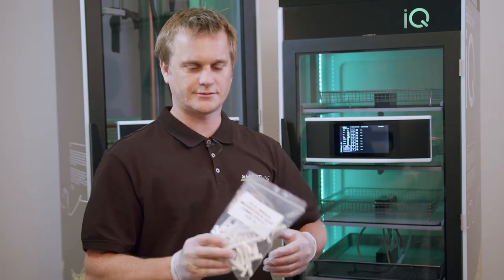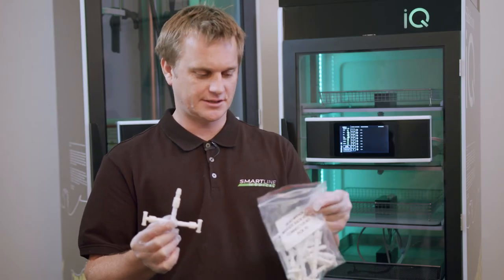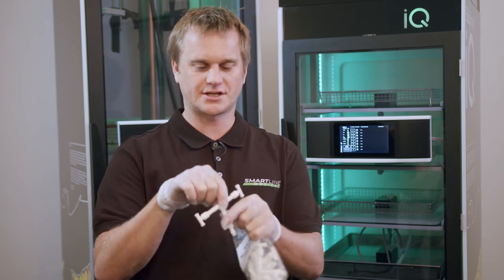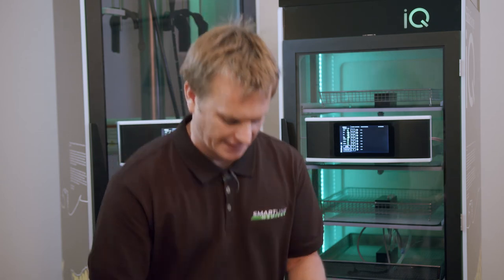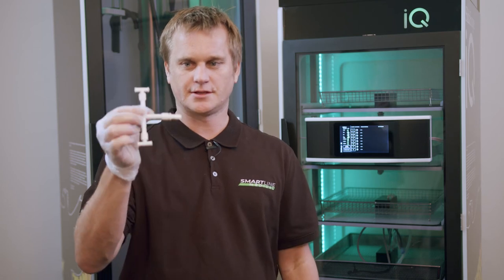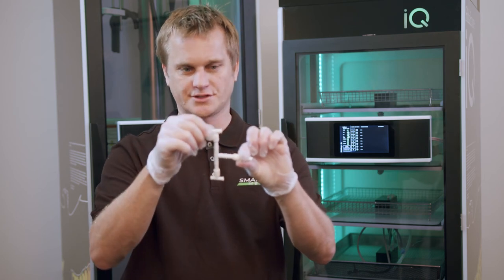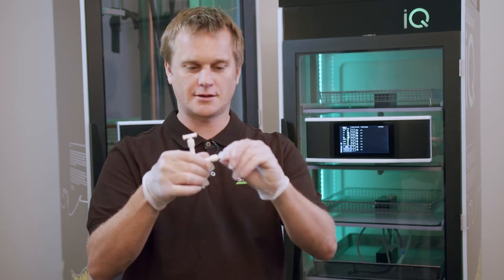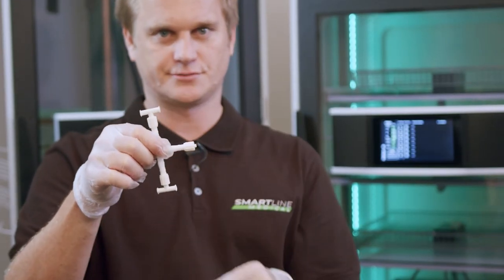When it comes to washing in CSSD, we have a product we sell in packs of 10. These are called washer rack hose connection kits — you get 10 in a pack. It allows you to connect four hoses in CSSD at a time per port. So basically if you had a grommet, you would push the barb into the grommet and then connect your hoses. By removing the barb, you can connect to a lower port on the washer rack and still get four.